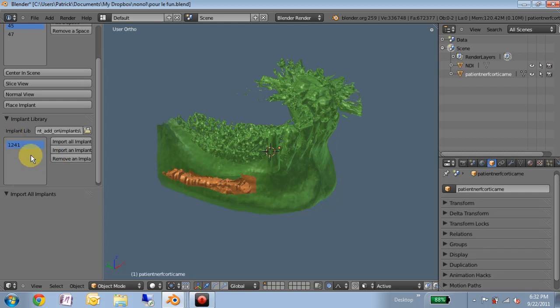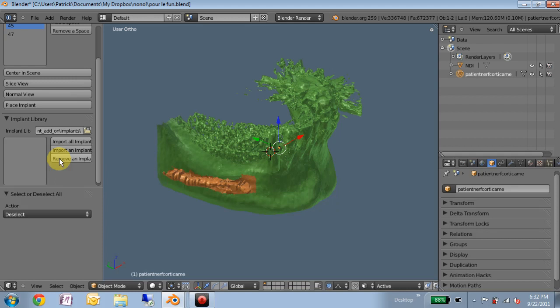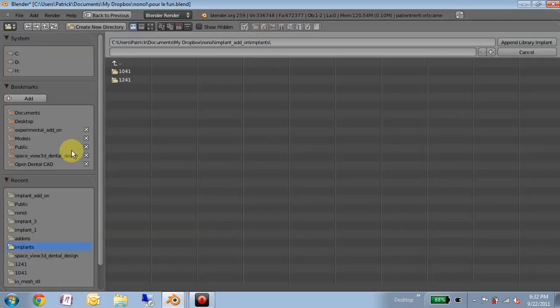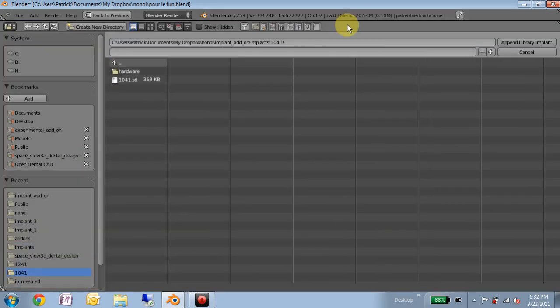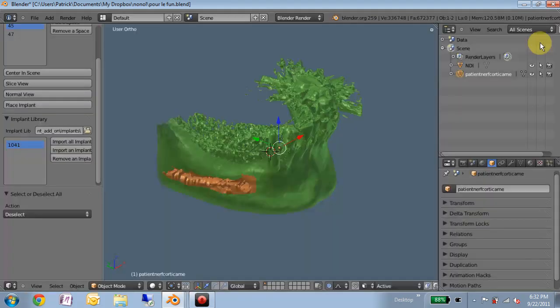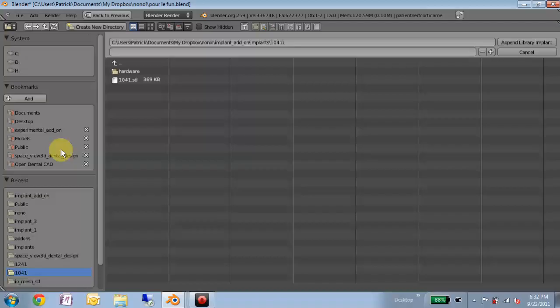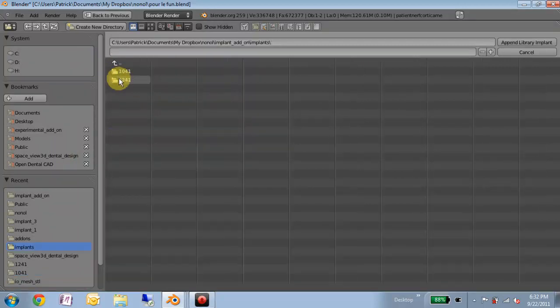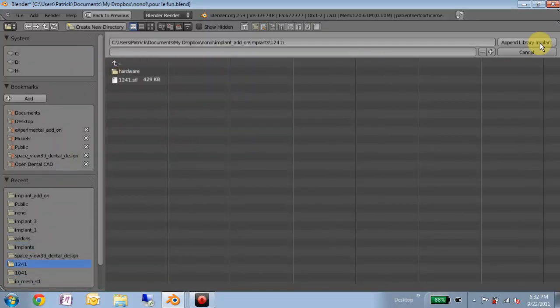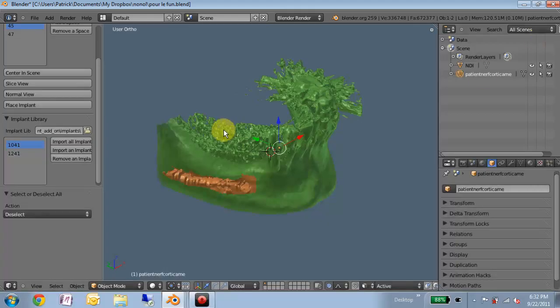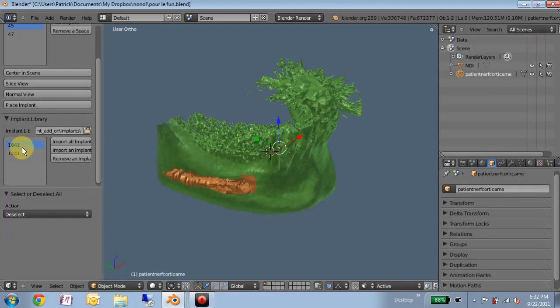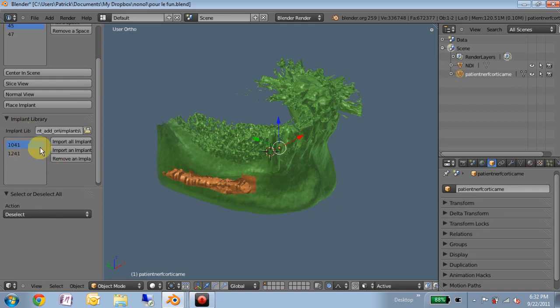Here I can remove them both. If I wanted to import them individually, let's say you had an extensive implant library but you just wanted to work with a few to limit your number of choices or just for convenience, we can import an individual implant. You select the folder, and there it brings in just that one. So now that these are here, all these are really references to the location of the 3D models on your computer. So these haven't actually loaded a lot of data into your blend file.